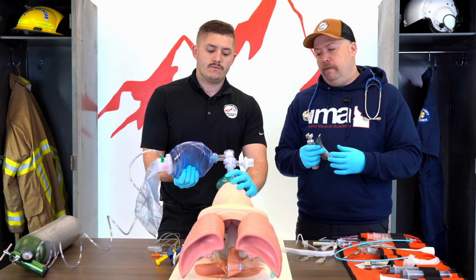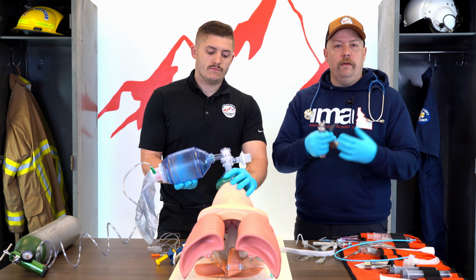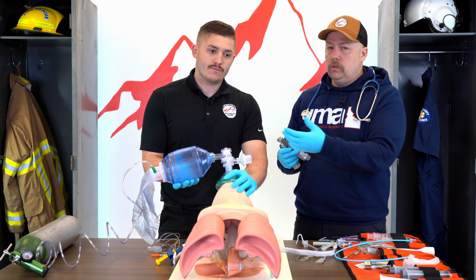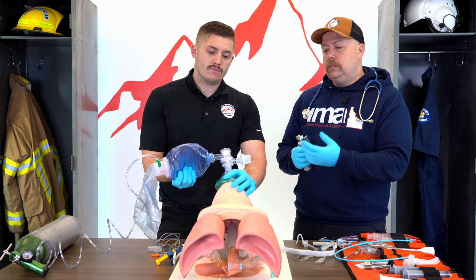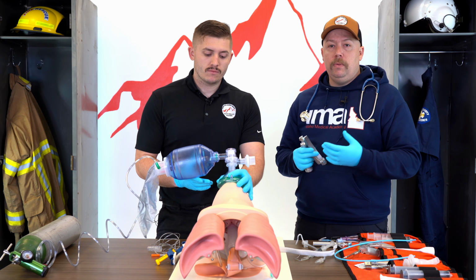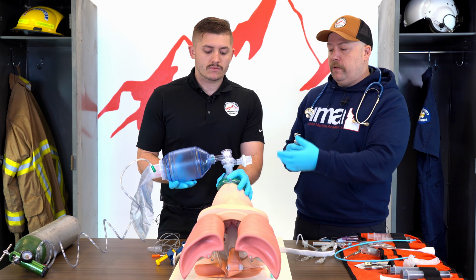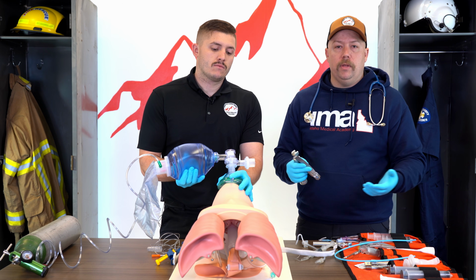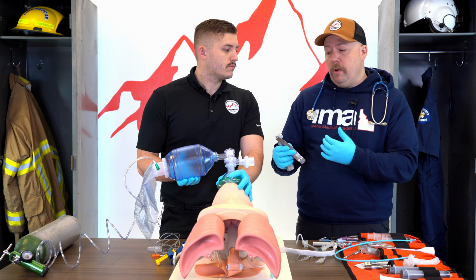So if you don't prepare, you're preparing to fail, whatever little saying you want to remember. I like to have all this set up beforehand so this goes really smoothly. Like Cody said, you might just be out here on the airway and I might be doing all these things. Or I might be doing medications and have a firefighter or somebody else doing this and asking my partner to set up my intubation supply. So make sure you're aware of those things.